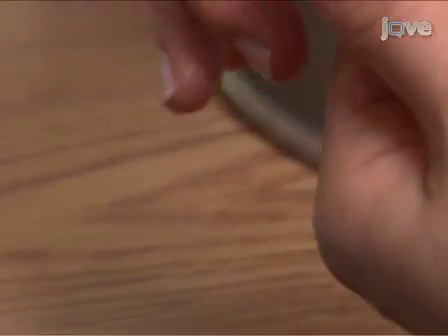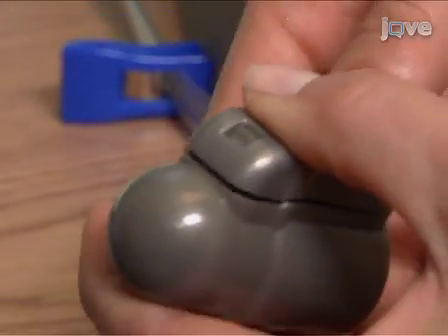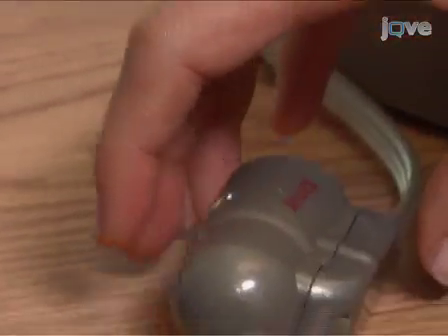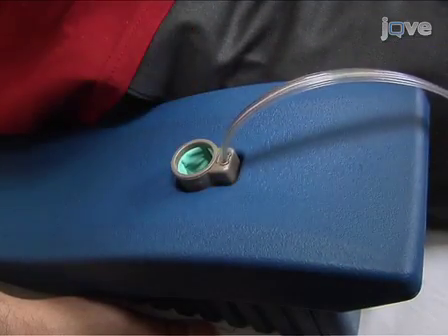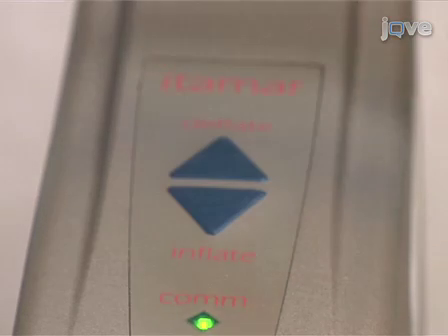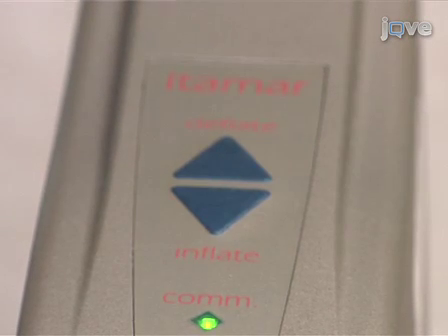Next, select 2 new PAT probes and connect them to the pneumoelectrical tubing by inserting the connector tab into the probe until it clicks. Finally, insert the probes into the sockets of the arm supports and press the deflate button on the top of the Endo-PAT 2000 device. The system is now ready for experimentation.